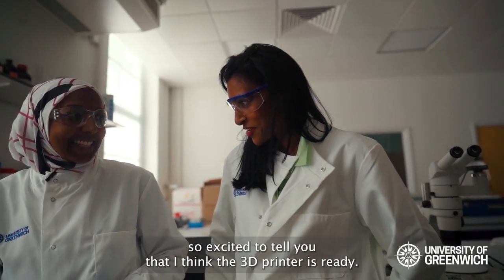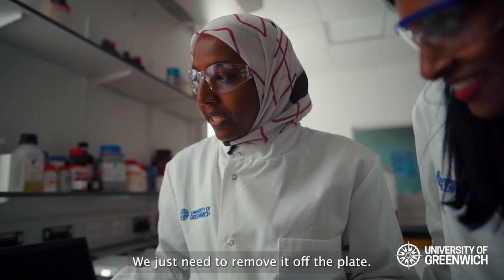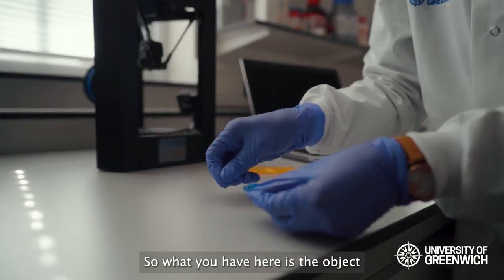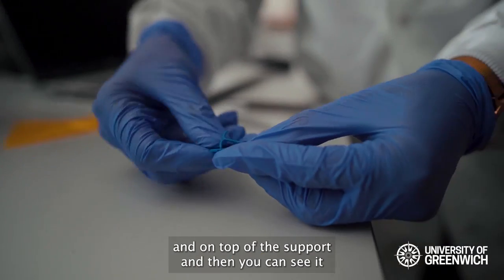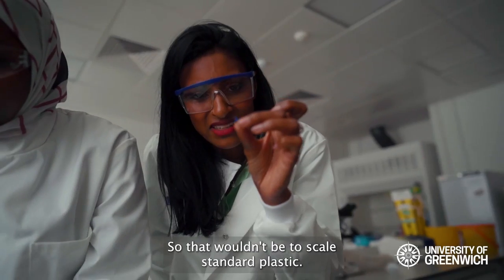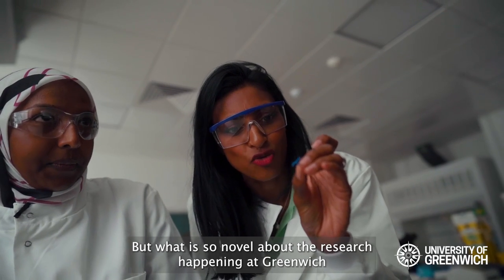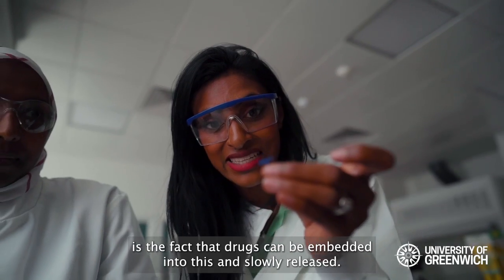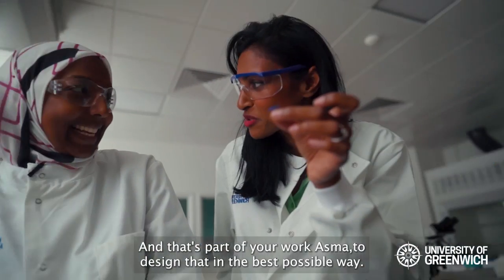Asma, I'm so excited to tell you that I think the 3D print is ready. Yes, it is. So what happens next? We just need to remove it off the plate. What you have here is the object on top of the support. That wouldn't be to scale — standard plastic, no drugs in this. But what is so novel about the research at Greenwich is the fact that drugs can be embedded into this and slowly released — and that's part of your work, Asma, to design that in the best possible way.